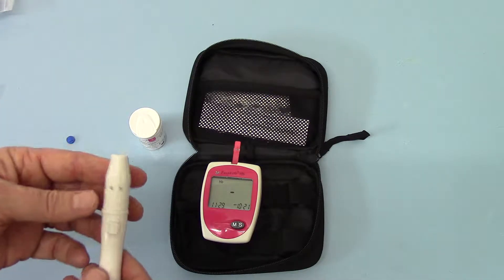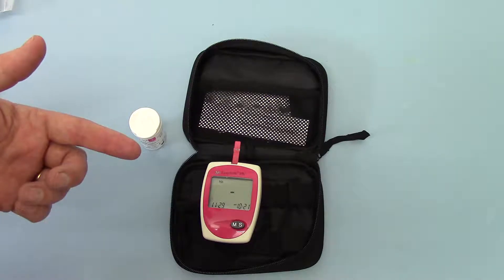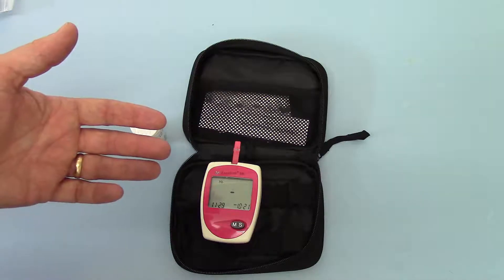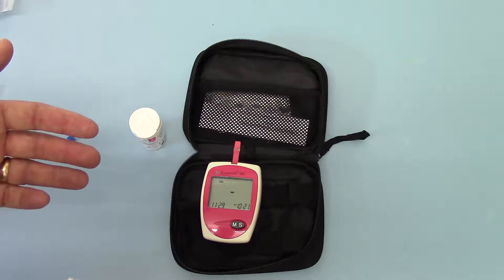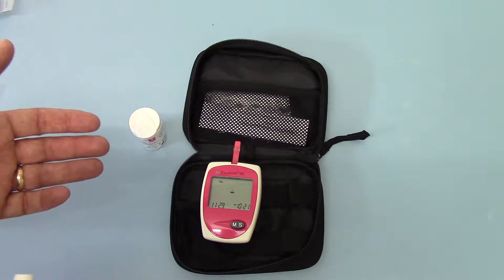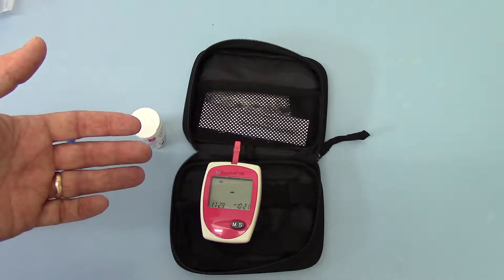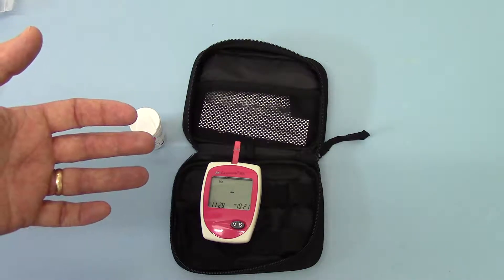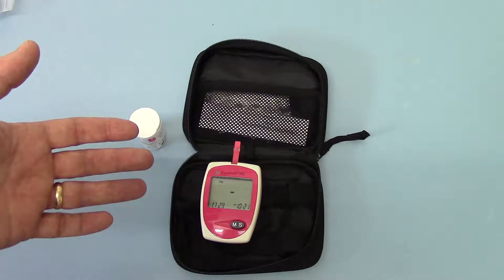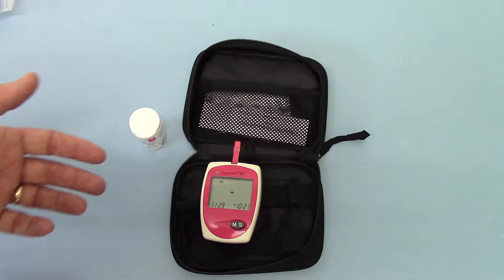I've got this setting on 5 which is the deep lance setting. My fingers are nice and warm — a key contributory factor is your capillary flushing. You'll see my fingers are quite flush with blood at the moment. If you're cold and shut down peripherally and you try and do a lance, you're not going to get sufficient blood sample without squeezing your finger. When you squeeze your finger doing a haemoglobin reading on a capillary sample, all you're squeezing out is plasma serum — very few red cells. You could get an abnormally low reading, or sometimes concentrate it and get an abnormally high. You don't want to squeeze the finger; you want the blood sample to form totally naturally.